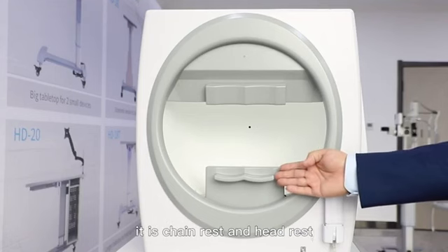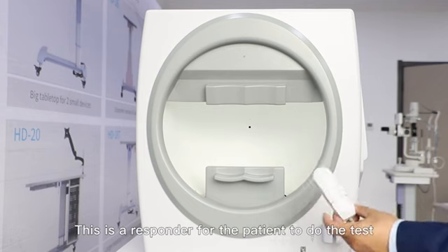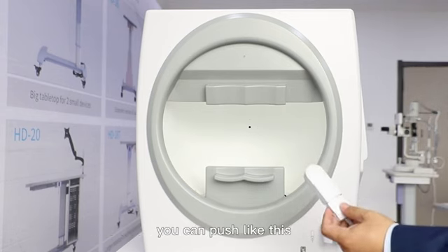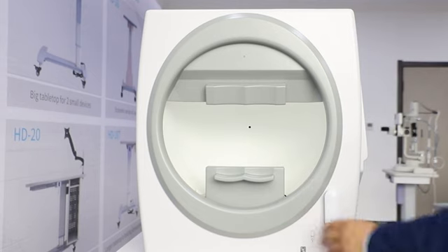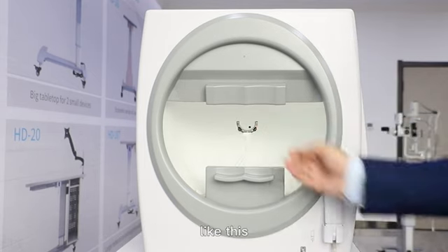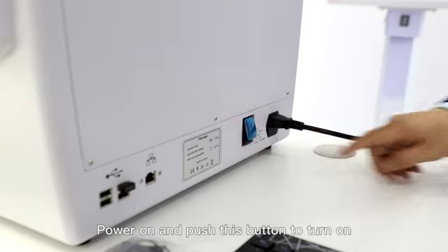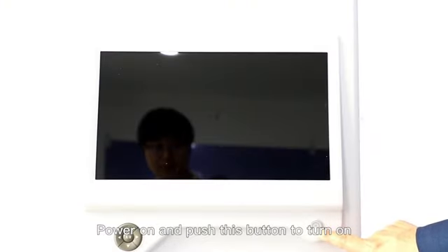On this side, there are the chin rest and head rest. This is a responder for the patient to use during the test. You just push like this. And then inside there is a refractive lens holder, like this, and it is for those who are nearsighted or farsighted. Power on. And push this button to turn on.